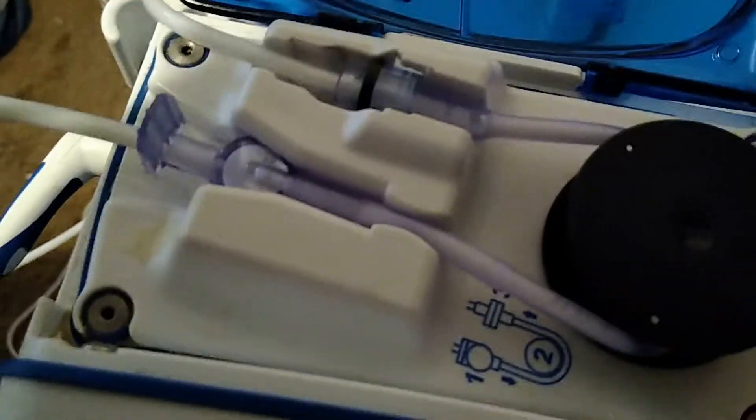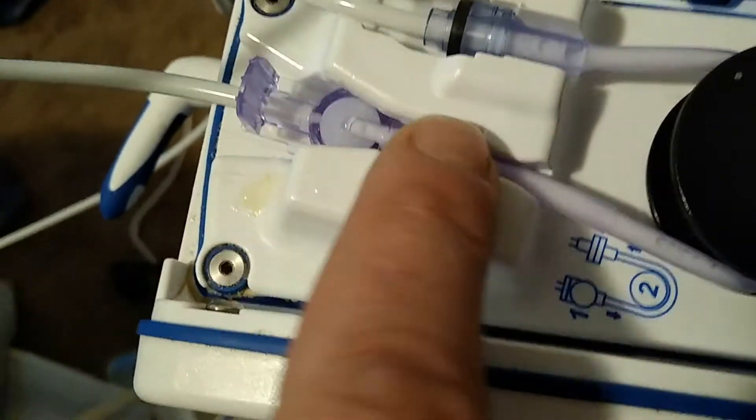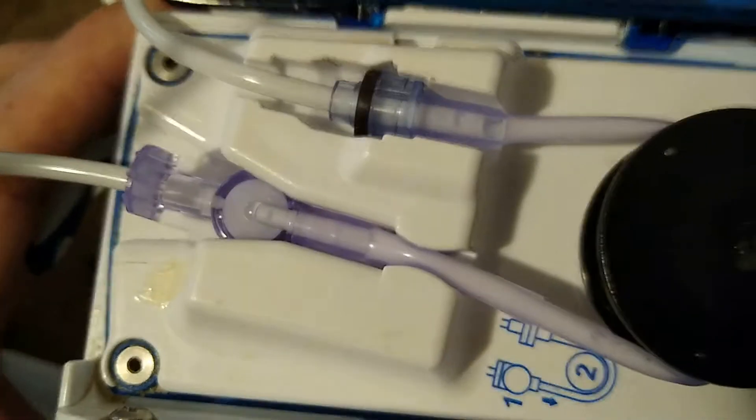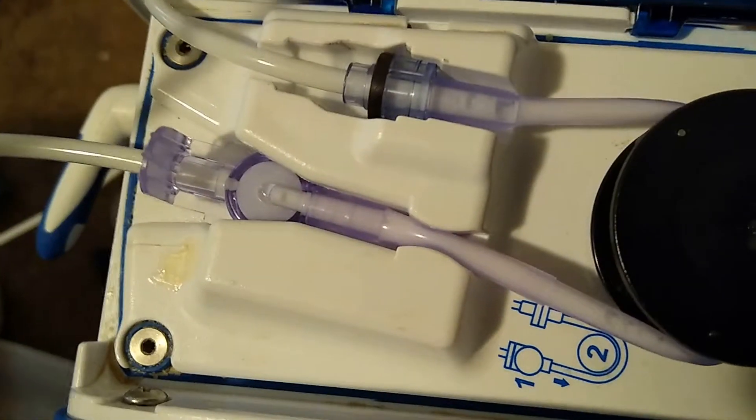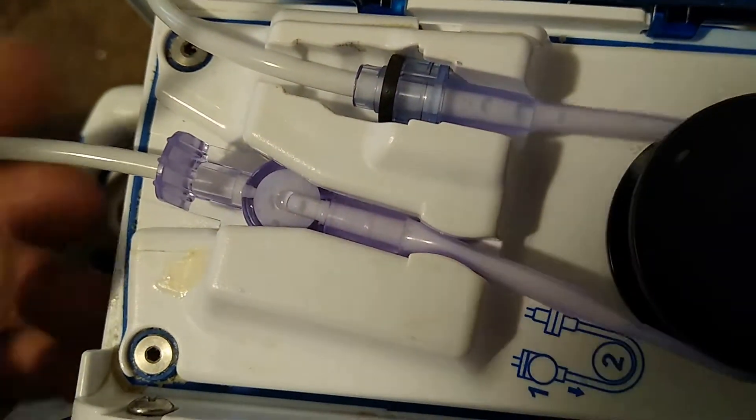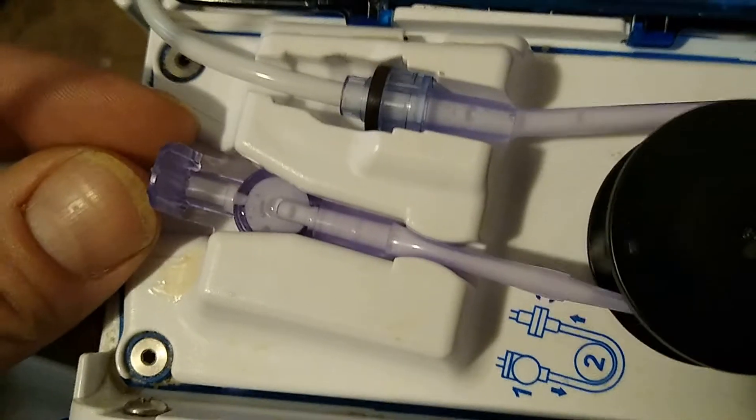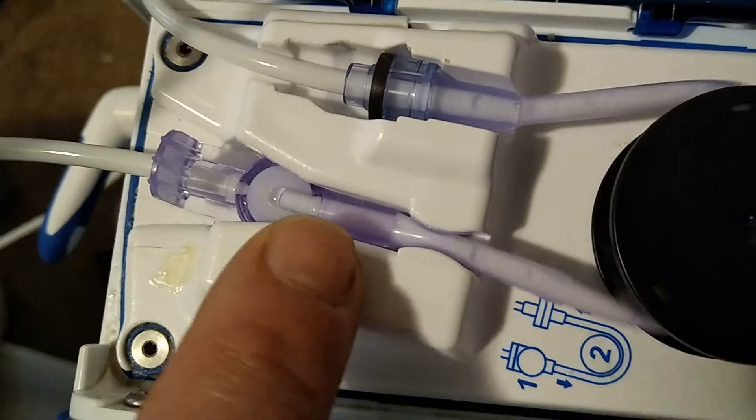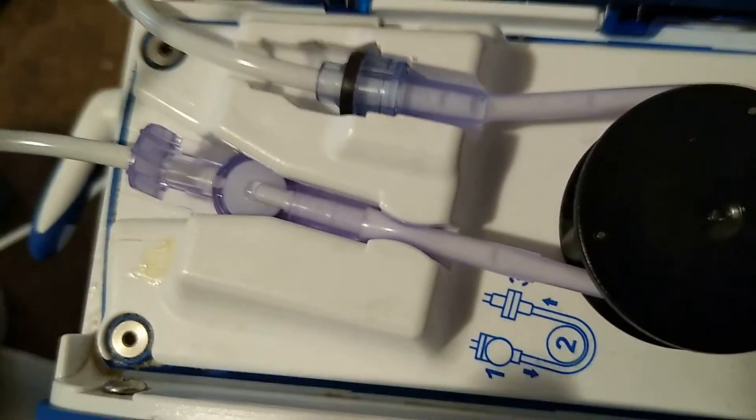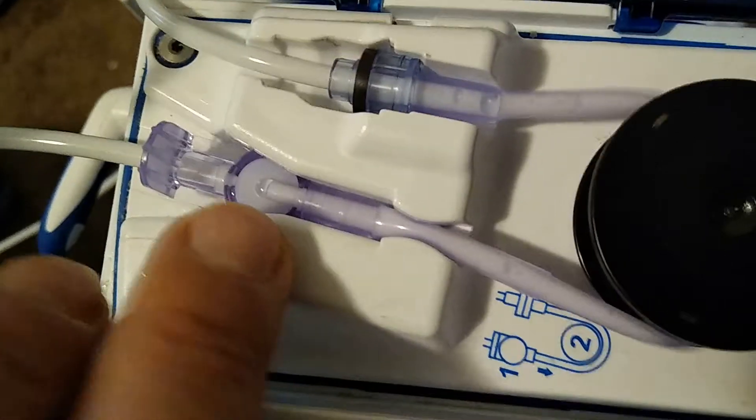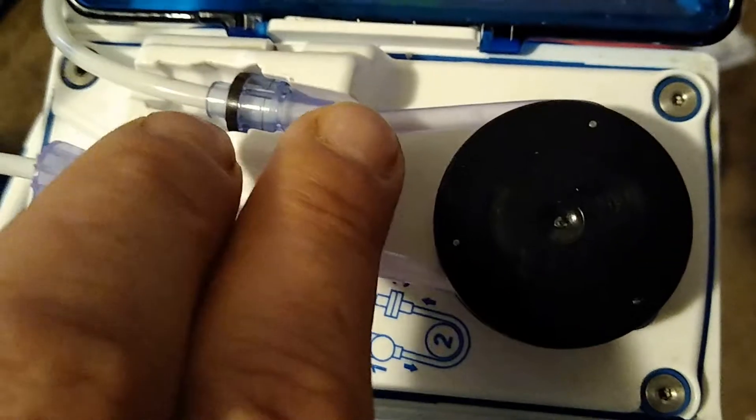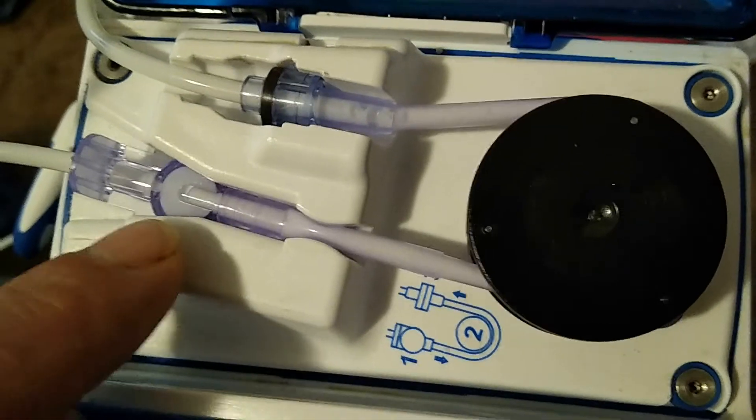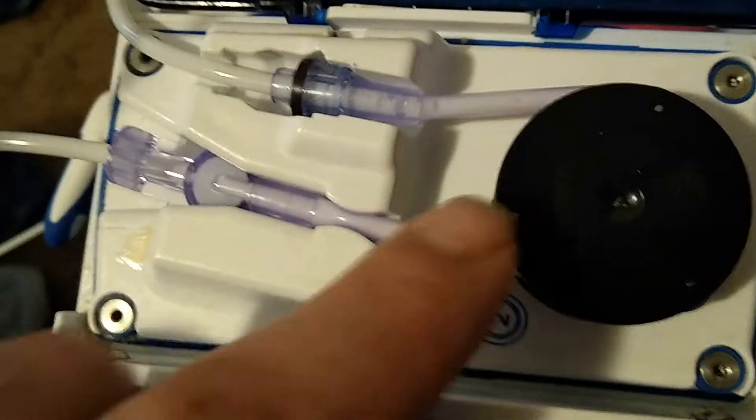I'll try to show you, try to show them right there. And hopefully I flicked it enough that it'll shoot that bubble through there. See? You see it? So once you get there, see there's no foam here and actually passed through. You can see it going through.